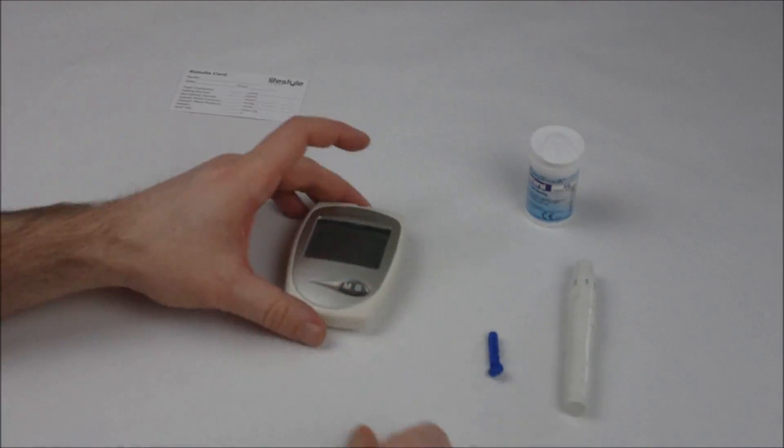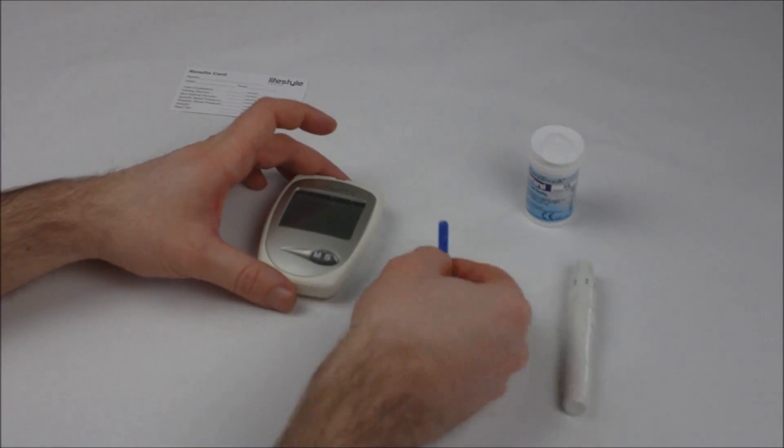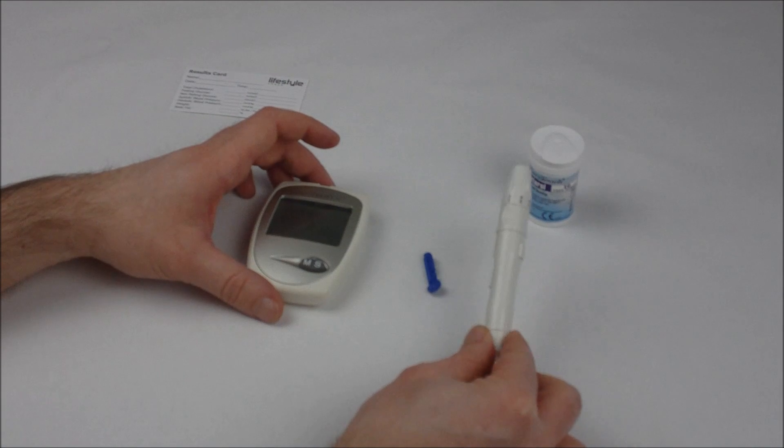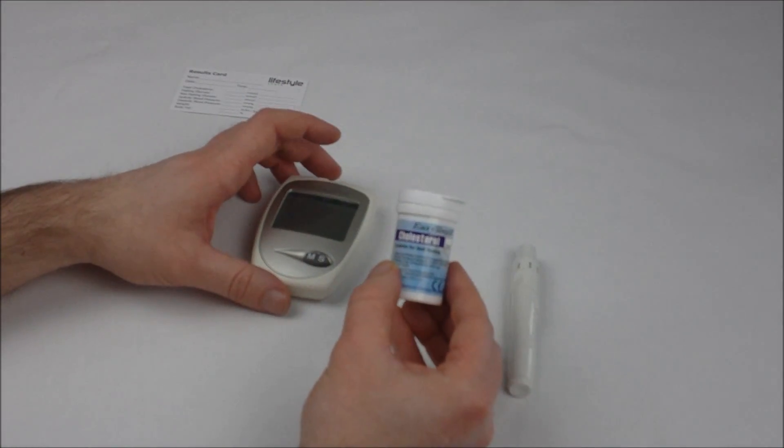To do this you'll need the monitor itself, a lancet, your lancing device pen, and your vial of cholesterol test strips.